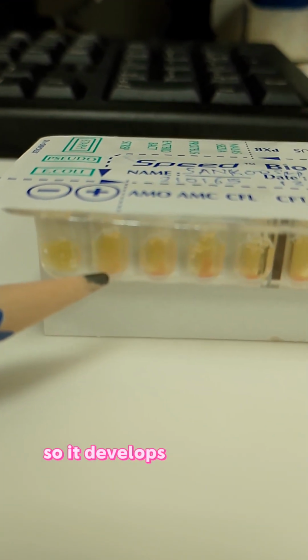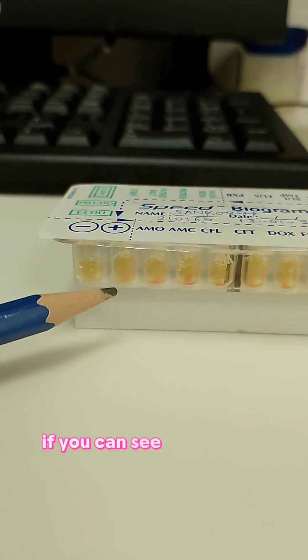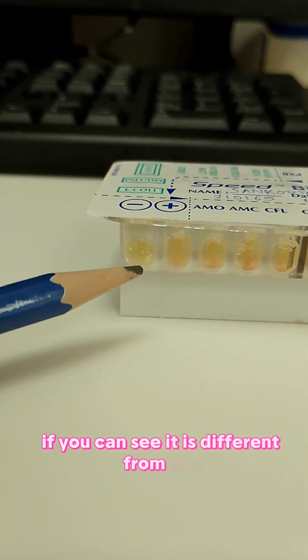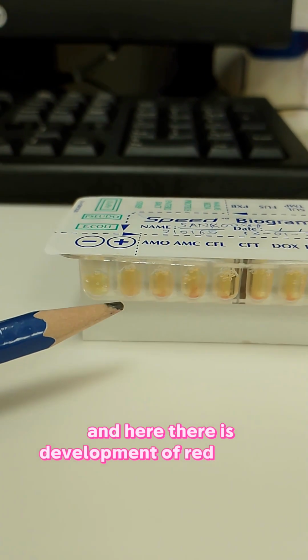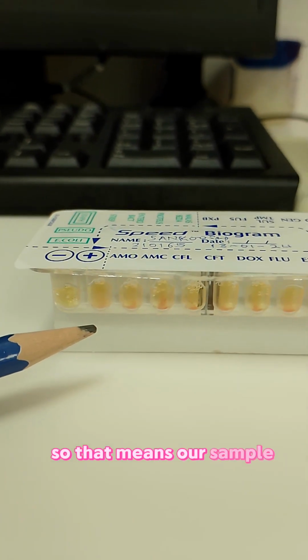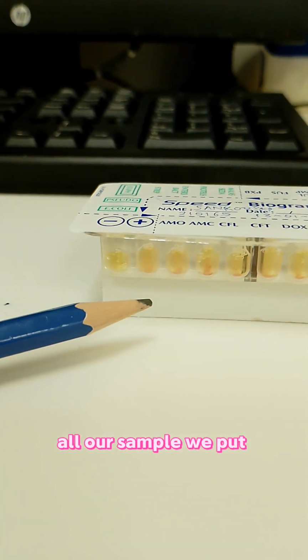It develops red streaks. If you can see, it is different from this. This is a clear solution, and here there is development of red streaks in it. So that means all the wells we put our sample in are positive.